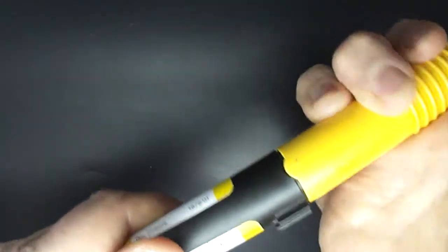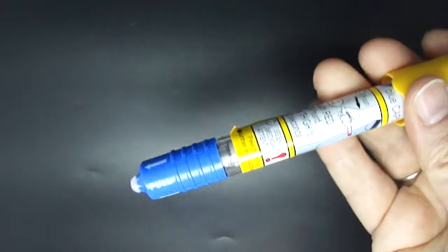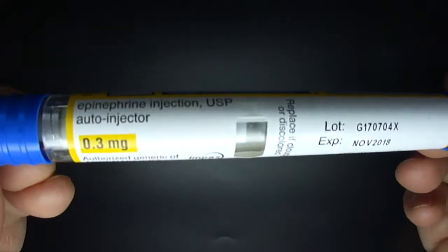You open the case by twisting and here is the device and you can again see the information about epinephrine.